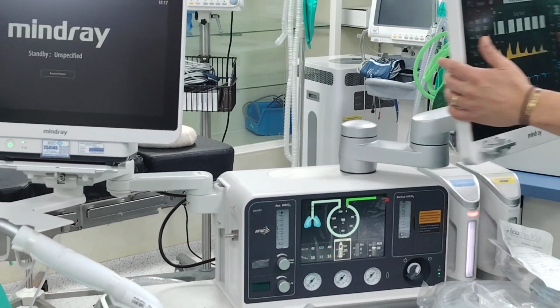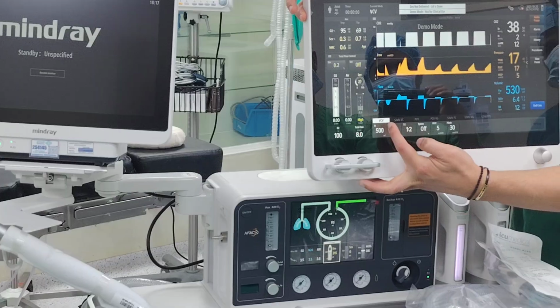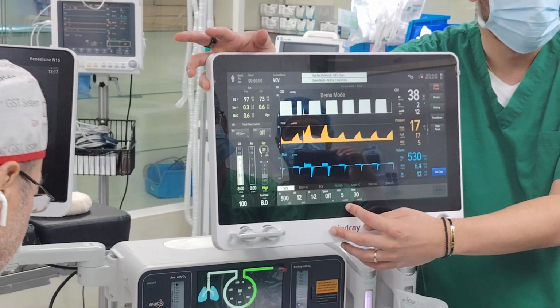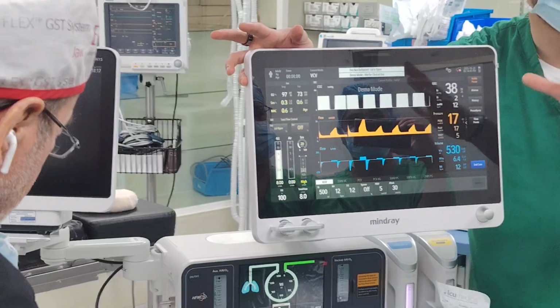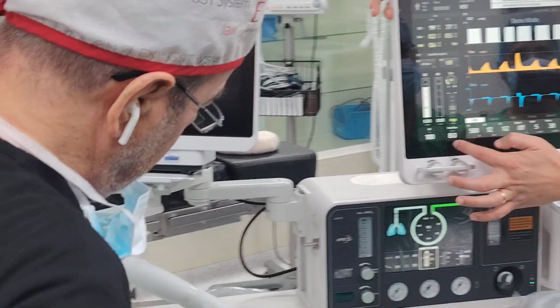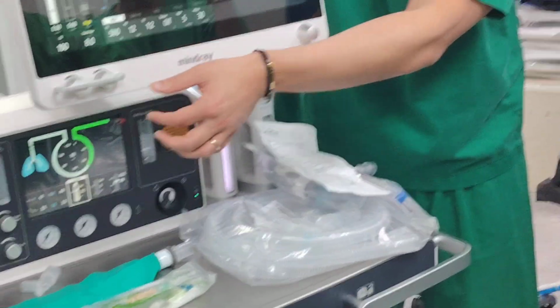Okay? Now when we are automatic, I put for you the volume control as the main mode. What I put differently is PEEP 5. Because here PEEP 0 means PEEP 0. And I think 5 is good as standard. Right? Now we will go down to low flow. Instead of you, Doctor, changing like this, we are in the demo mode, so there is no issue.